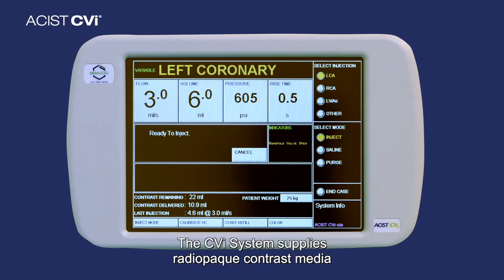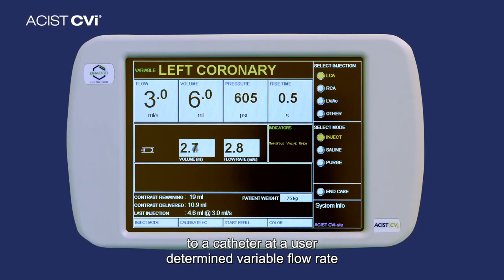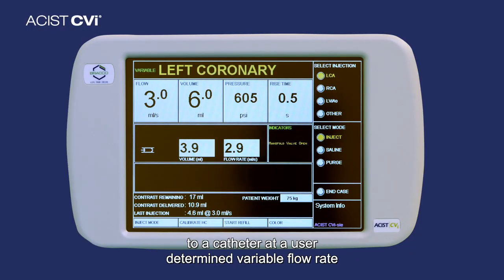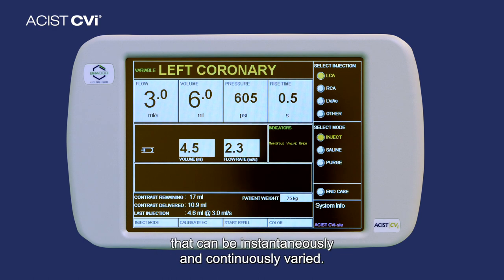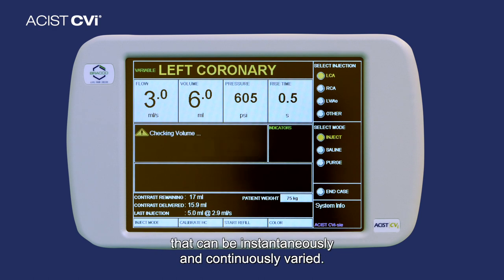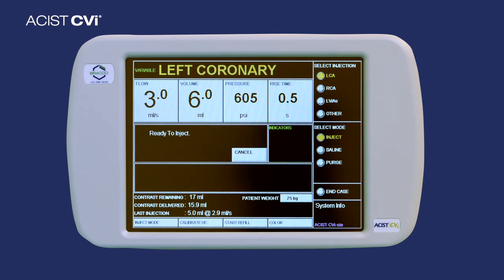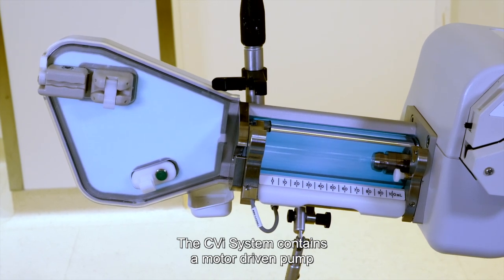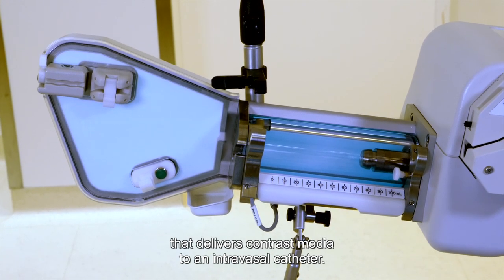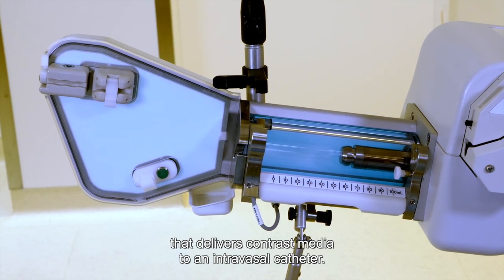The CVI system supplies radiopaque contrast media to a catheter at a user-determined variable flow rate that can be instantaneously and continuously varied. The CVI system contains a motor-driven pump that delivers contrast media to an intravasal catheter.